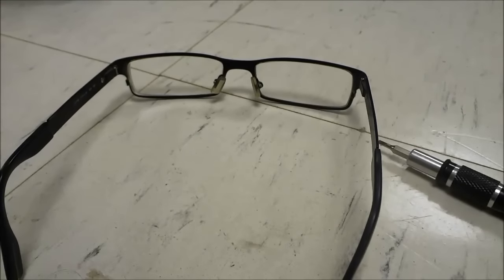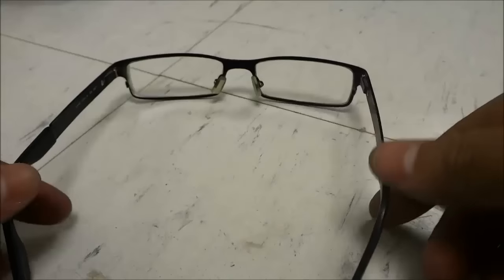Hey everybody, I'm here today to show you how to tighten your glasses.